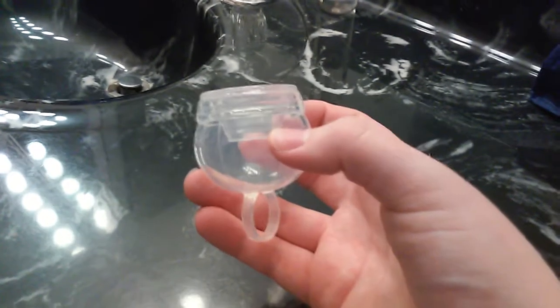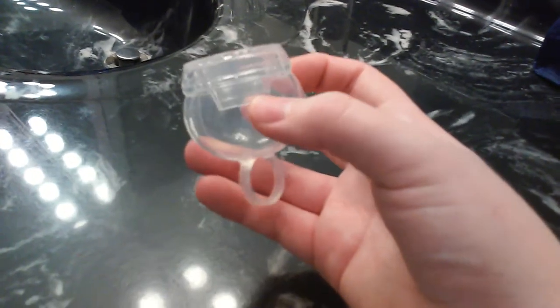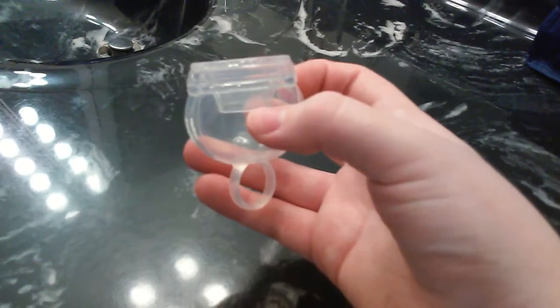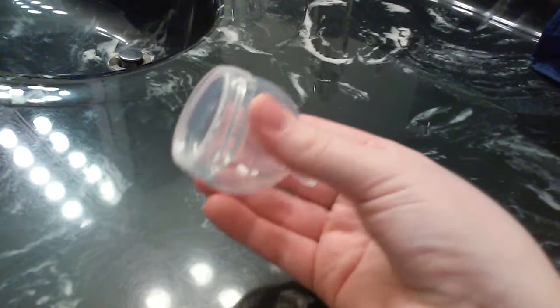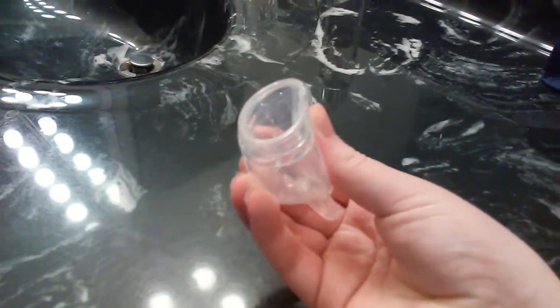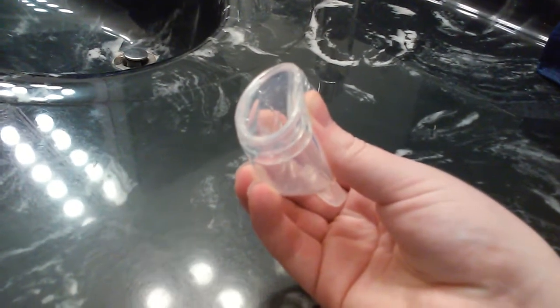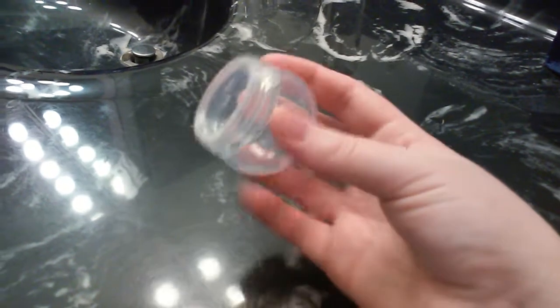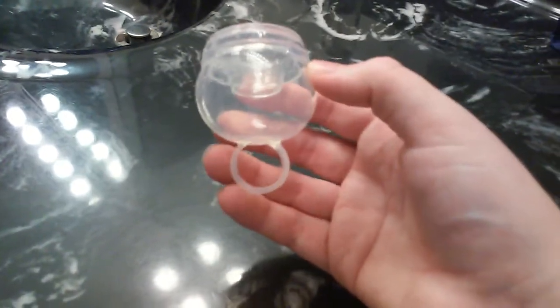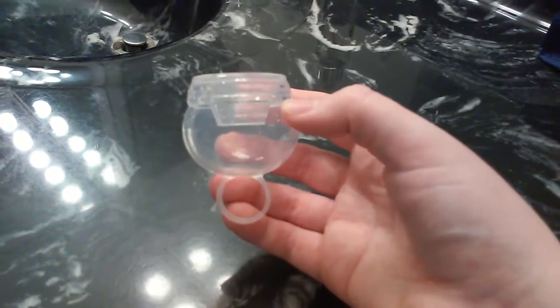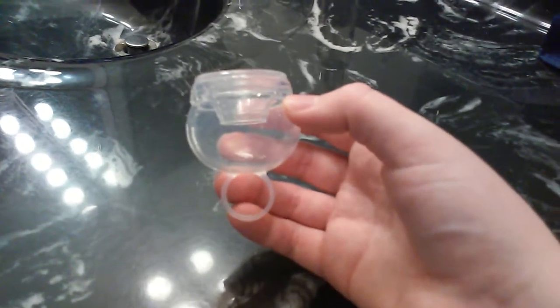One thing that I noticed with this cup is that it doesn't necessarily completely open when you insert it. It will sometimes stay sort of collapsed like this. It doesn't necessarily pop completely open. Now according to the manufacturer's website, the FemiCycle is designed to work without being completely open. So that shouldn't be too much of a concern.